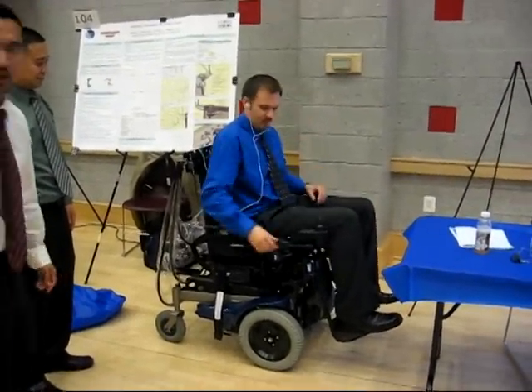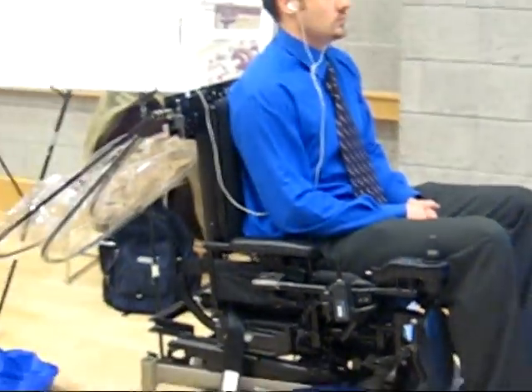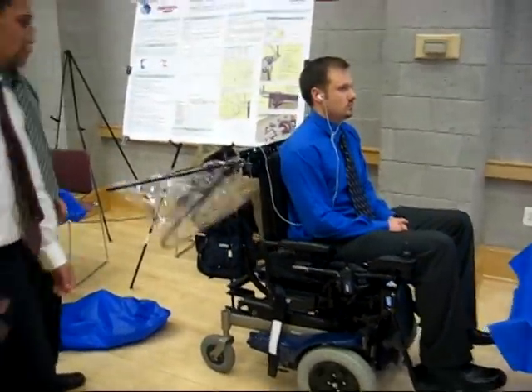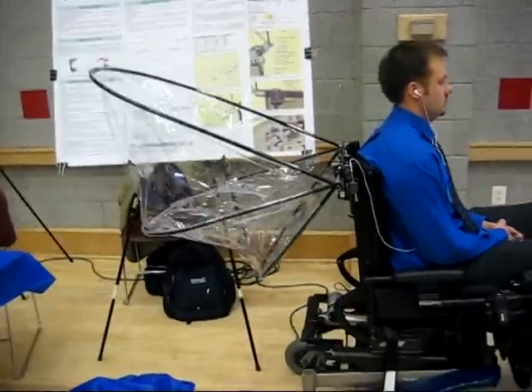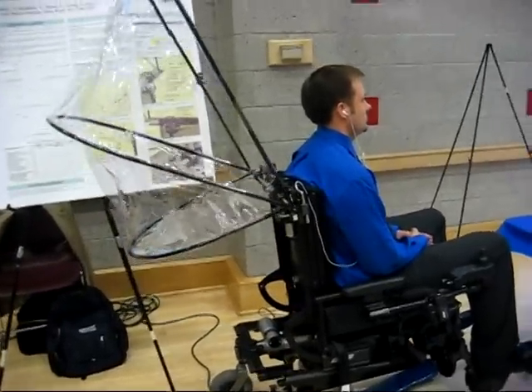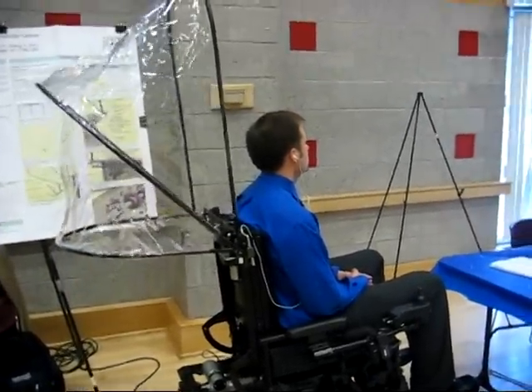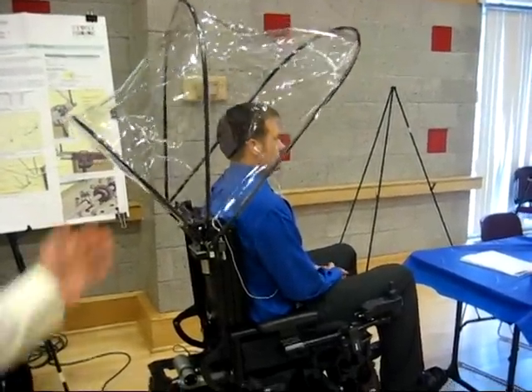As you see, the switch activated is located on the armrest. If you come back here, you'll be able to see the powertrain assemble the wheelchair canopy above the potential handicapped person.